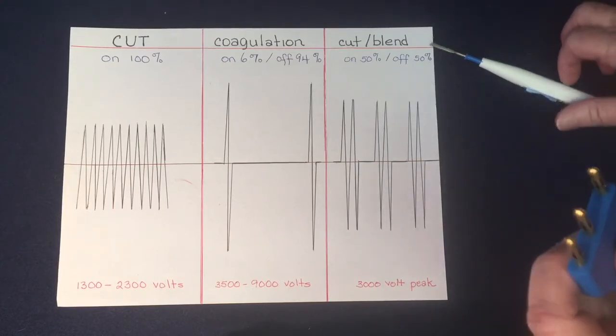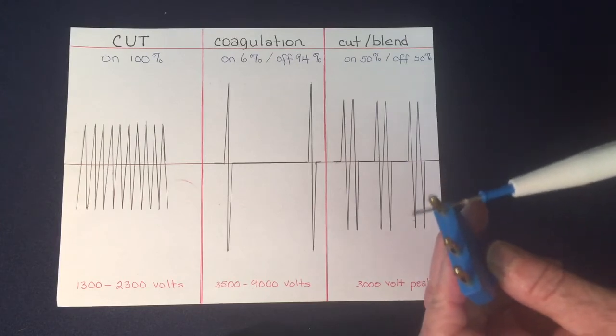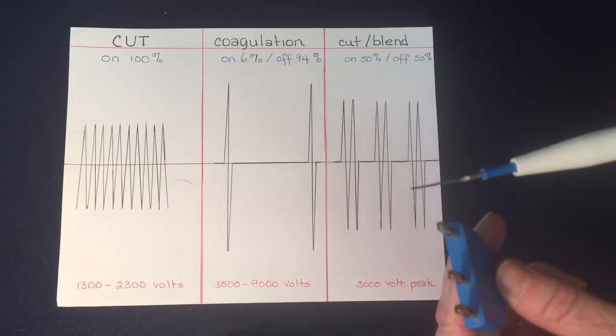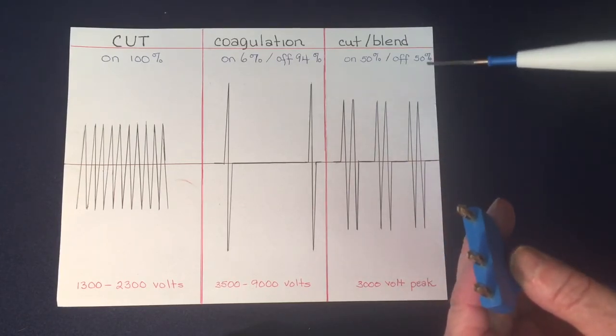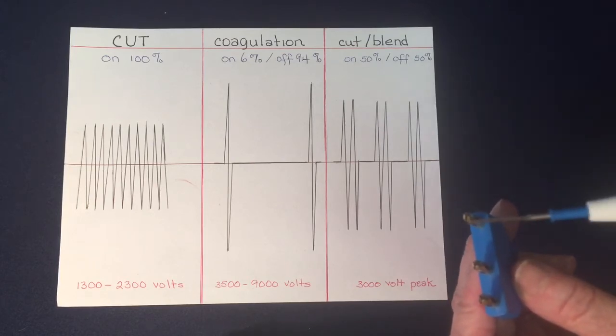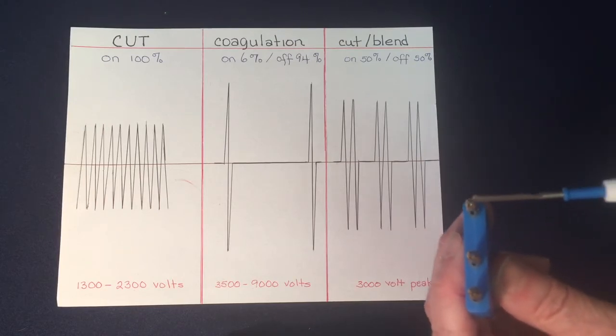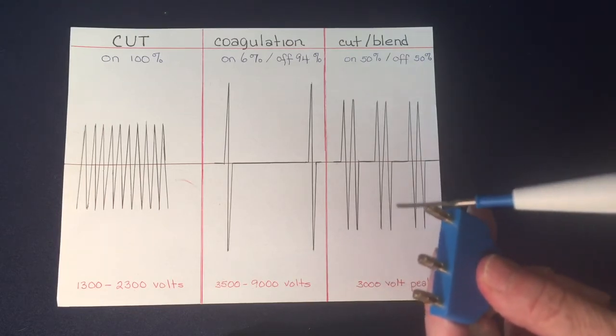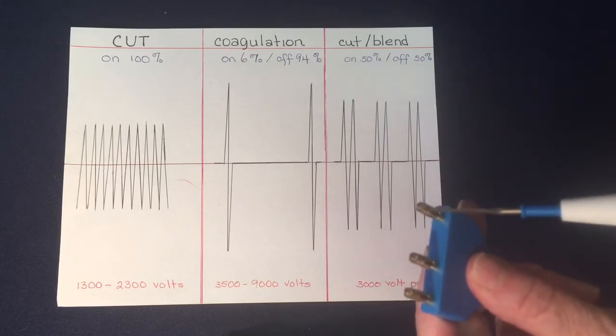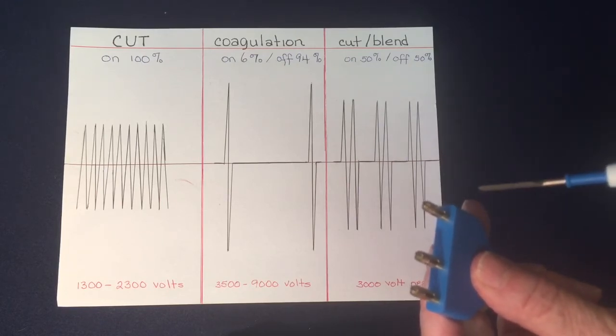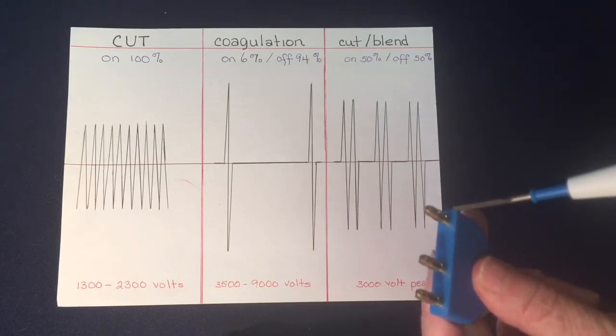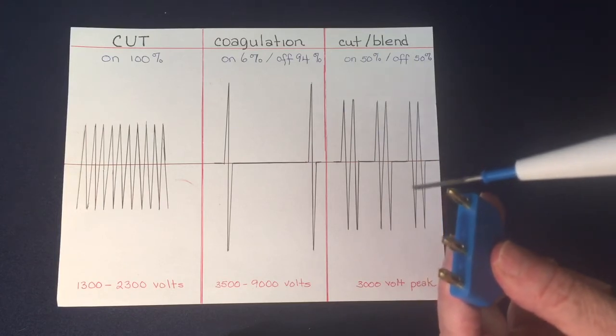What I have found is when I try to touch it like this and he moves, it can come off in the process because I'm looking up at the monitor and yet I don't want to look down at this as he's doing it, because I want to be sure that my timing is correct. So let's pretend that this one has a slit in it that goes all the way down like the prong that you have on the laparoscopic instruments.